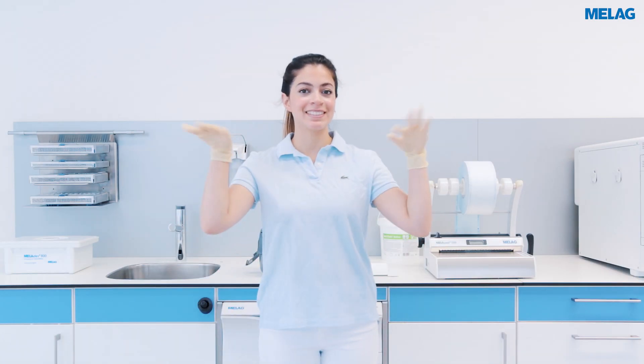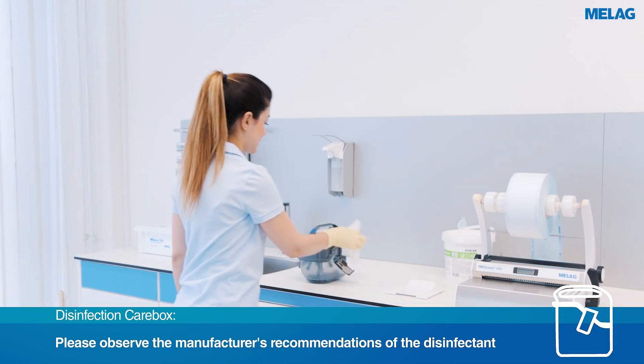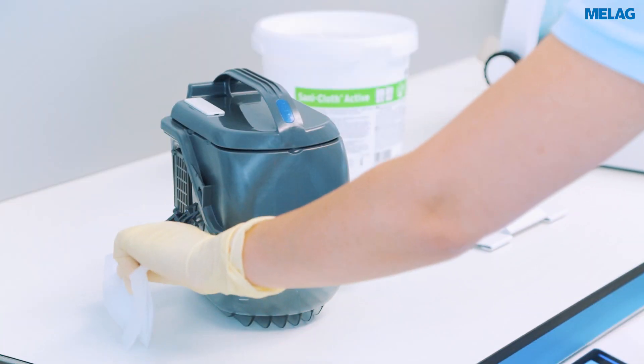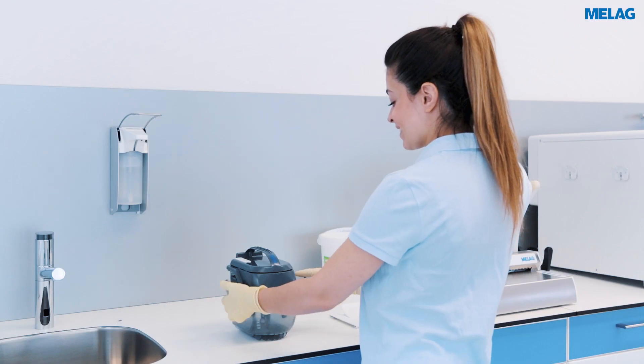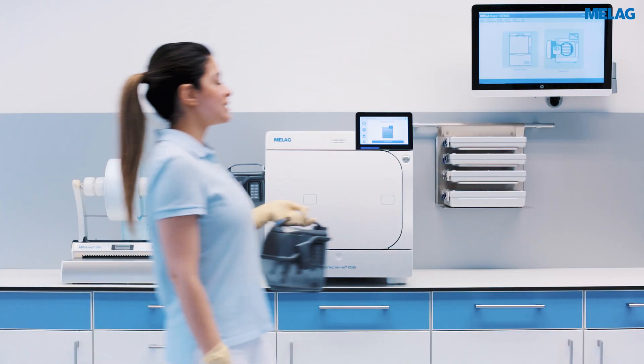Please change your gloves and then carry out a wipe-down disinfection of the outer surfaces. Careclave is supposed to be loaded directly after you've closed the Carebox.